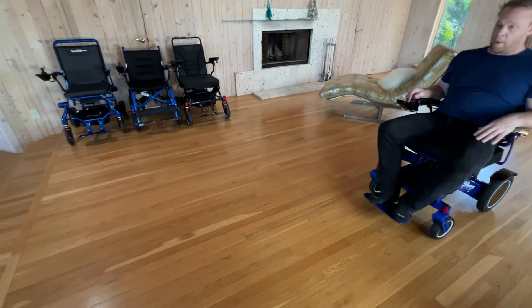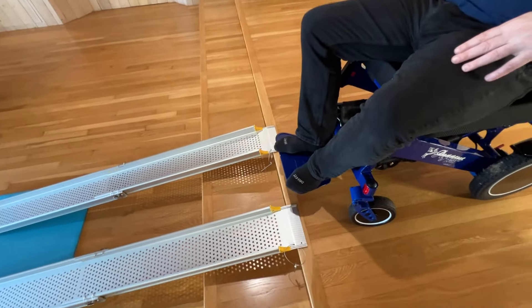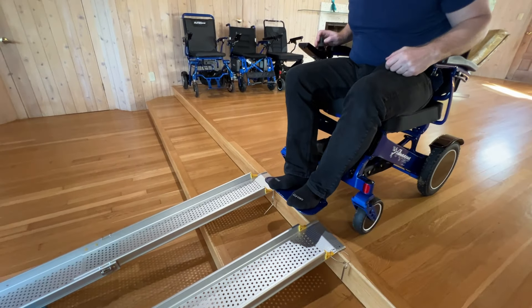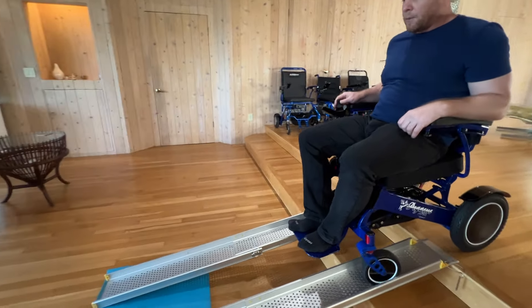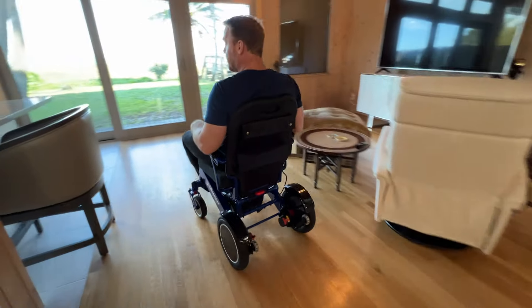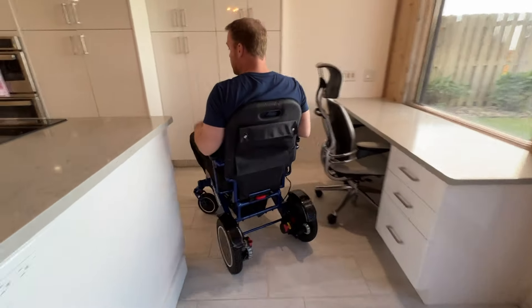Now here is the dangerous part. I'm cruising up here. I've got to say, I just love how this chair drives. Don't do this at home, people — this is not the intended purpose of this chair, going on a non-compliant ramp. And no problem at all. It was very easy. I mean, I really don't even need to take my finger off the joystick here.